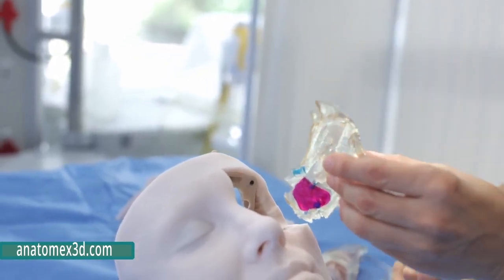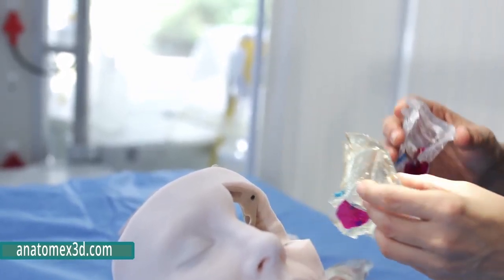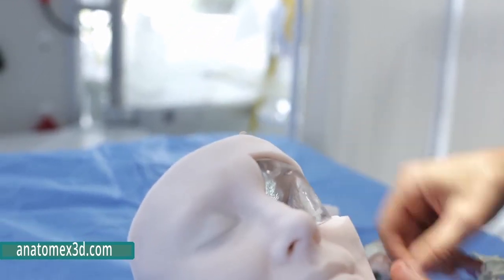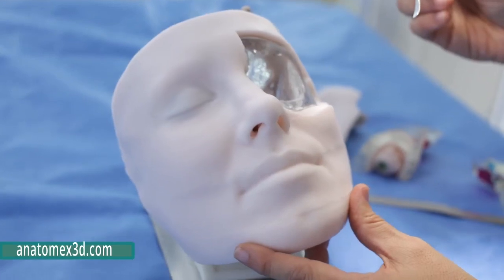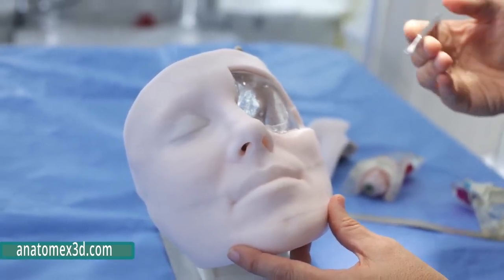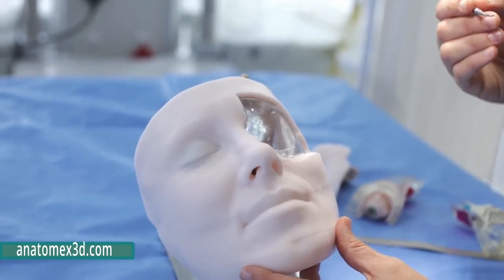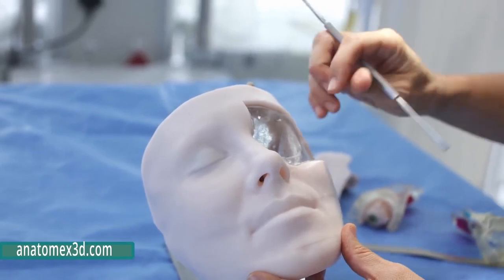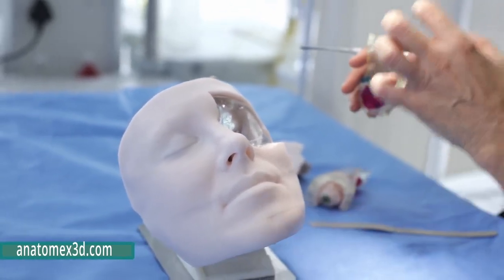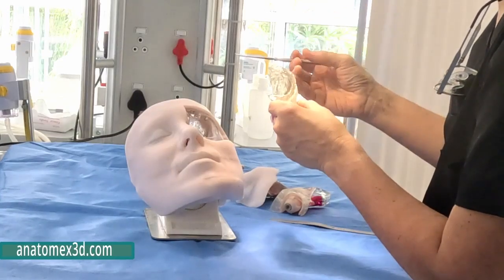If you want to get a little bit more complicated, or for complex disease, then we have a second model that will explain a certain kind of pathology, something we call a Sternberg canal defect, or these are patients who have spontaneous CSF leak or cerebrospinal fluid leaks from a lateral aspect of a well-pneumatized sphenoid sinus. This is really difficult to understand because if you use a normal model and you go through this greater wing of the sphenoid, you enter the middle cranial fossa.